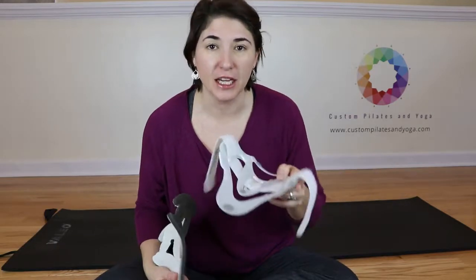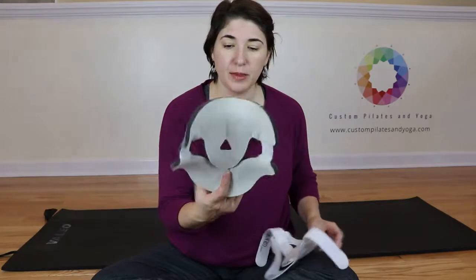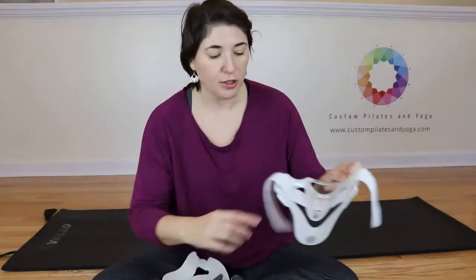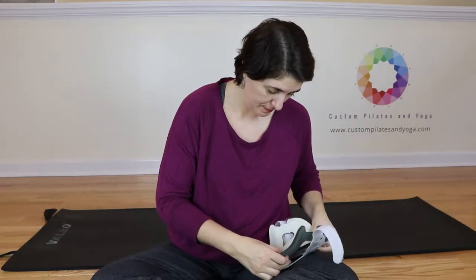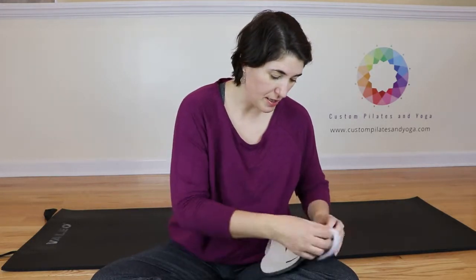So then because we haven't undone too much with the Velcro strap, when you go to put this in place, you notice there's the triangle here in the middle. And you're going to try to get that lined up with this triangle piece of plastic right here. And then just press down.